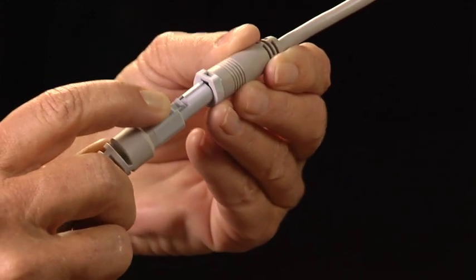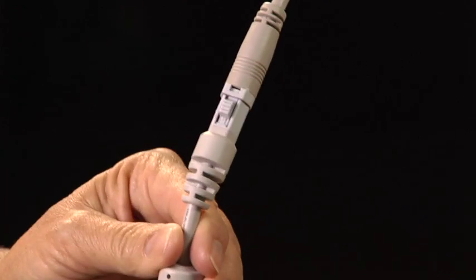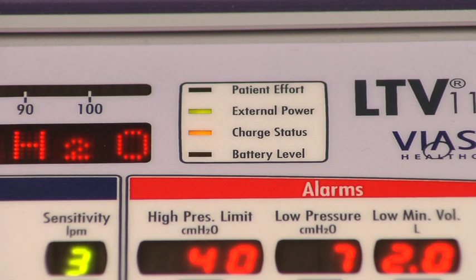Connect the proper AC power cable, either a 110 or 220 volt plug, into the AC power adapter. Connect the 110 or 220 volt power cable to a suitable power source. Verify that the external power LED shows green or amber.